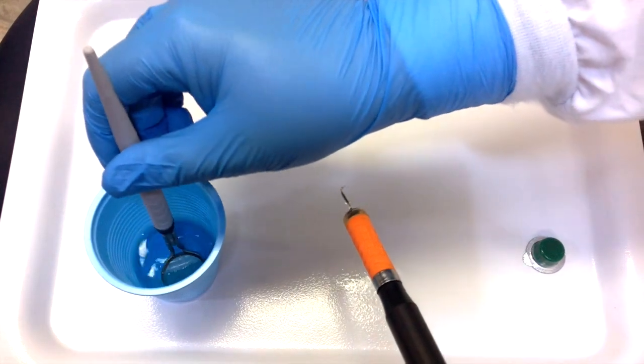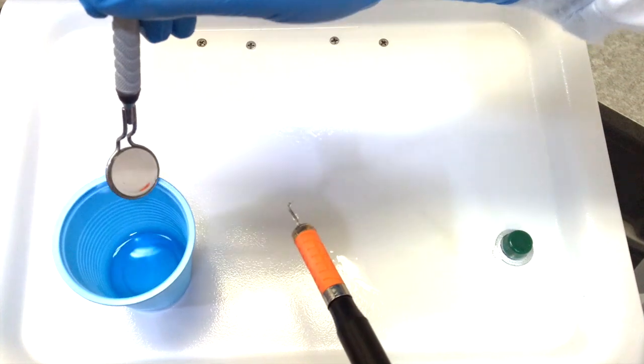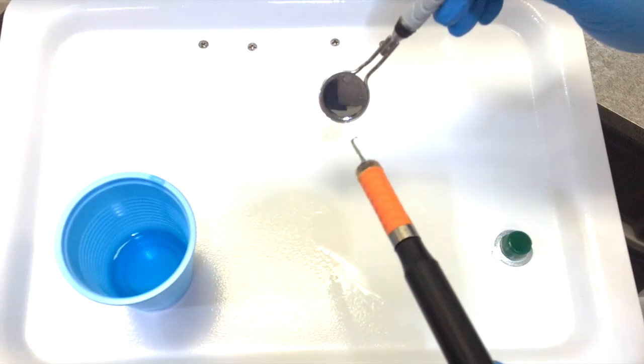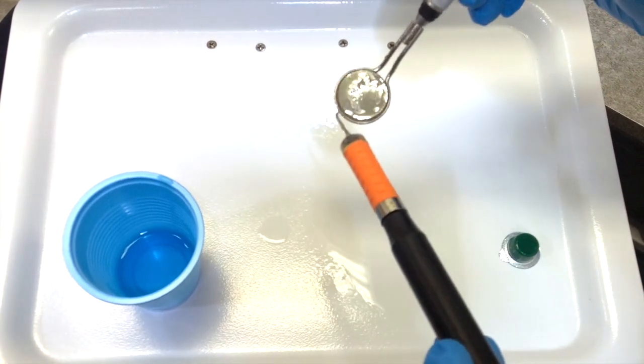So the first one you can try is dip your mirror in some mouth rinse. I recommend having clean mouth rinse, but you can use the ones you've used with your patient. And that really helps keep it wet and prevents the droplets.